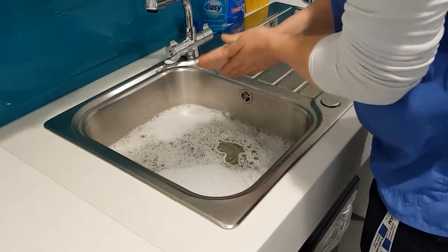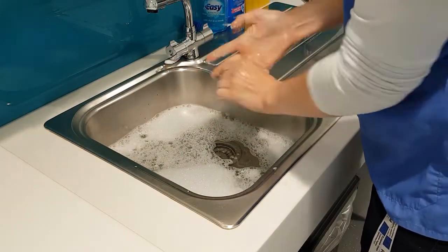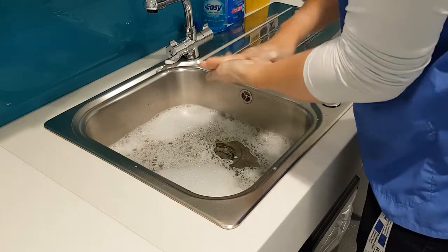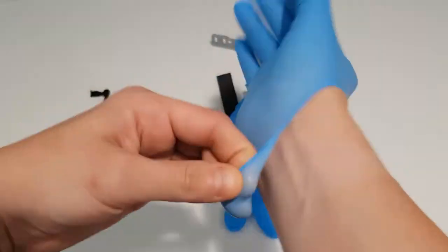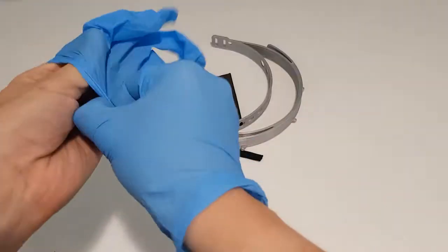Step 1. Preparing protective visors for disinfection. Wash your hands and preferably wear gloves prior to assembly and or disassembly of protective visors or any other PPE equipment. Also, wear a protective mask during the assembly process when possible.